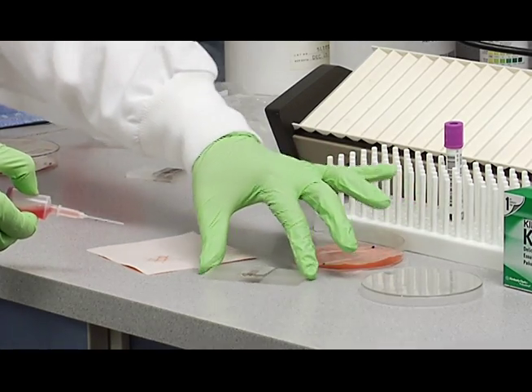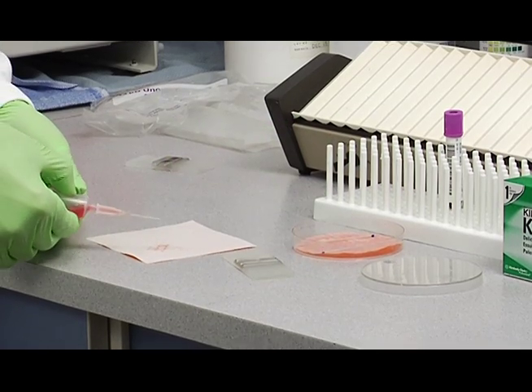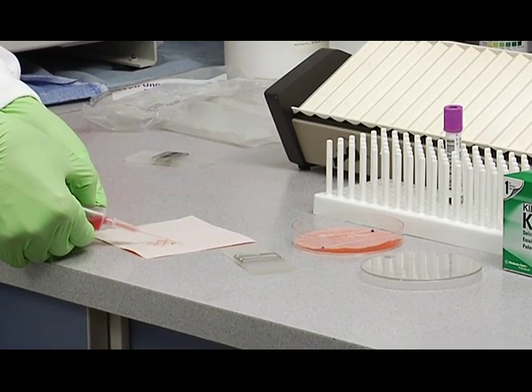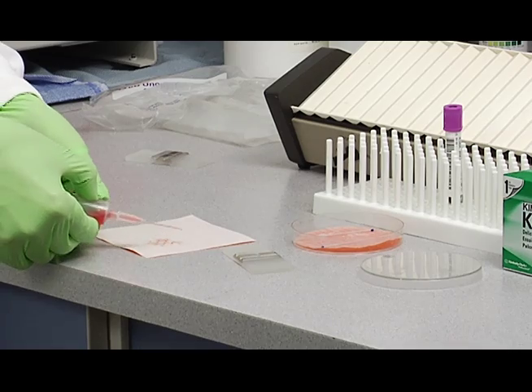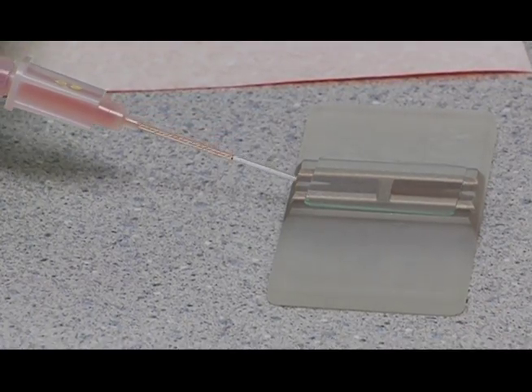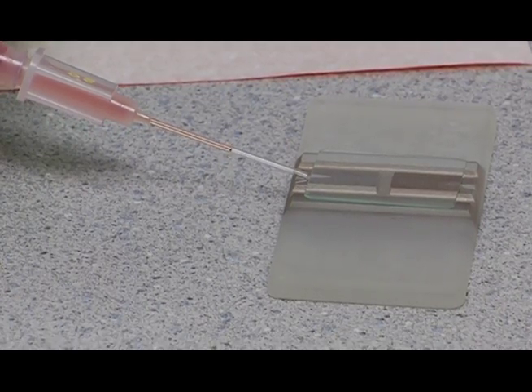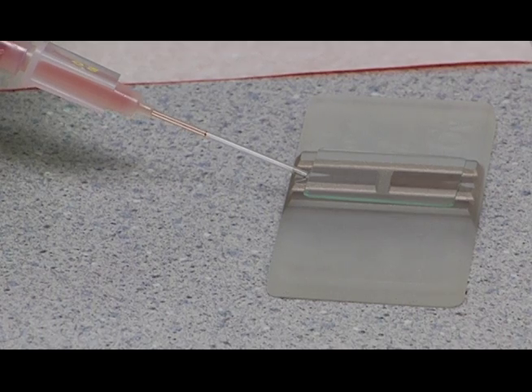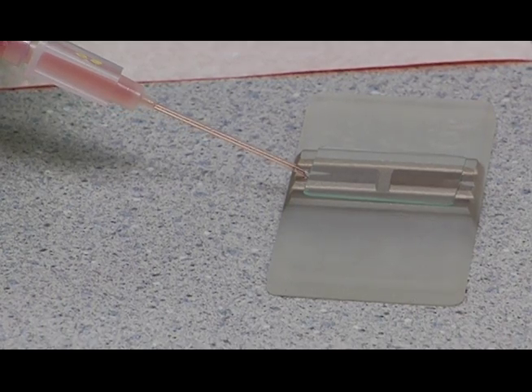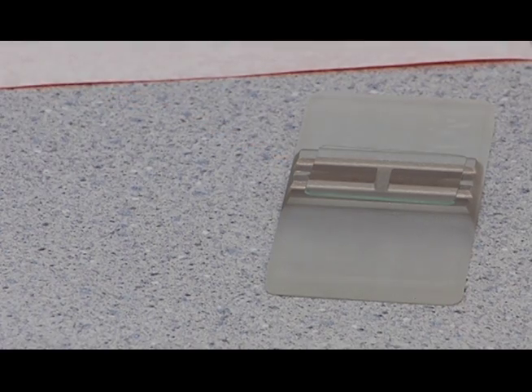For the other side, turn it around like this. Another drop out the tip. Make sure it's dry. Don't have a drop hanging out there. And then set it right here in the groove. About this angle. Give it a squeeze. It fills and come away.